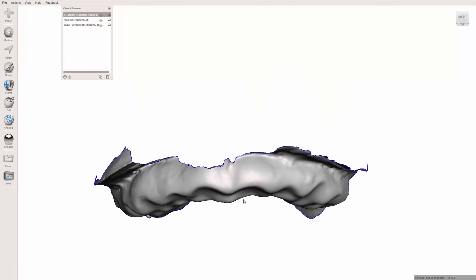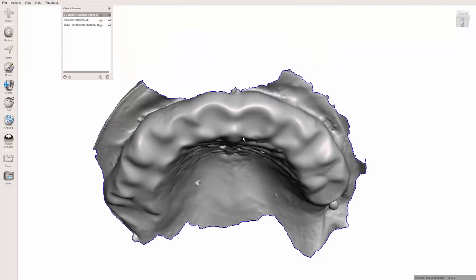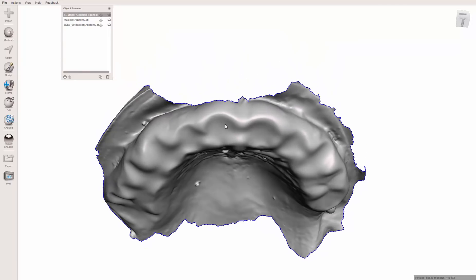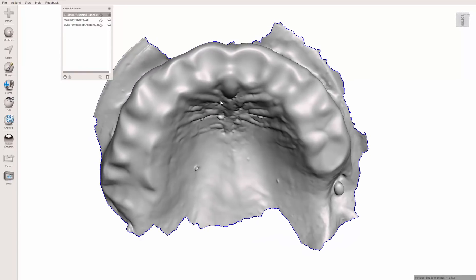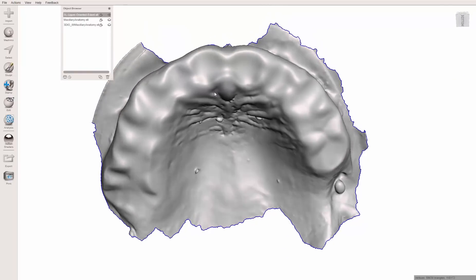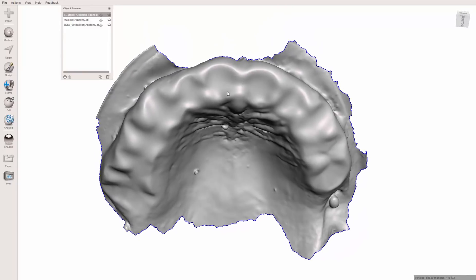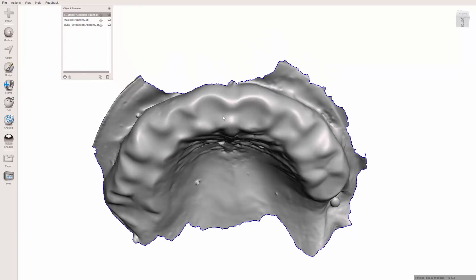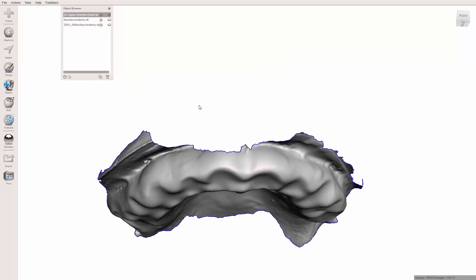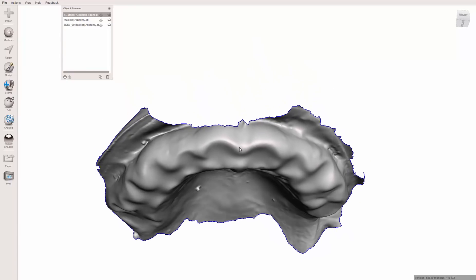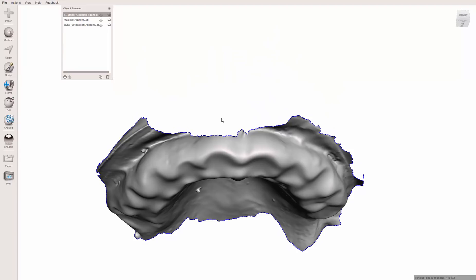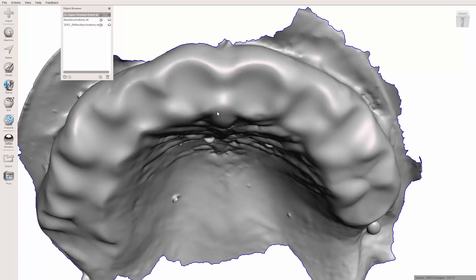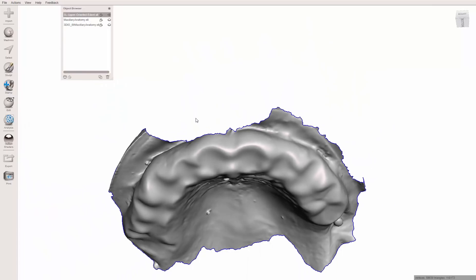But if that's not a possibility, I want to show you some ways you can simulate data and potentially get away with it. For instance, this is a case where I'm going to be doing an all-on-six hybrid on this patient and I've decided that I want to go ahead and have a denture ready. Of course, this impression is not great. I really should have taken more time to get a better impression. But let's see what we can do with this, can we get a vestibule in this anterior area to simulate something that we can at least adjust in the mouth and get us started.